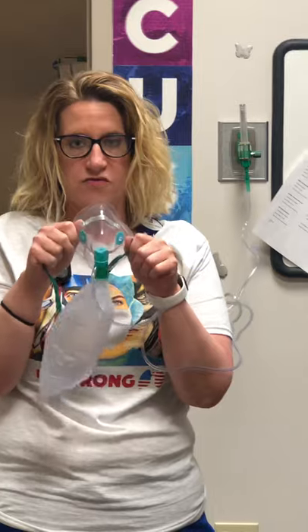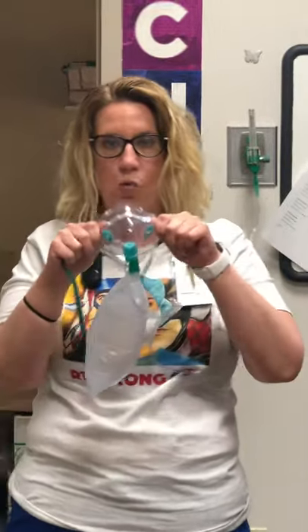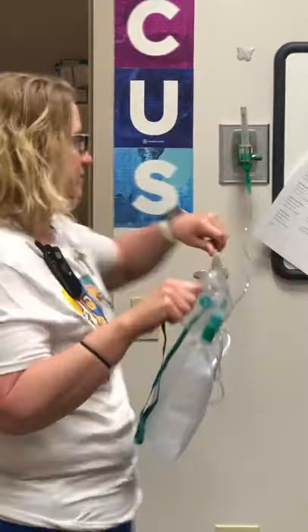You don't wean a patient on a non-rebreather. If they don't need the 100% anymore, then we go to a different device — back to a nasal cannula, or an Oxymask or something like that. You don't wean a non-rebreather.